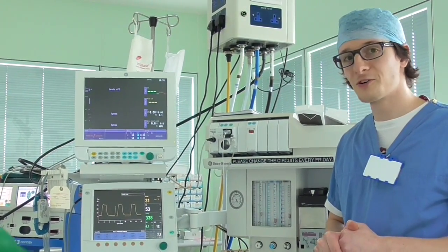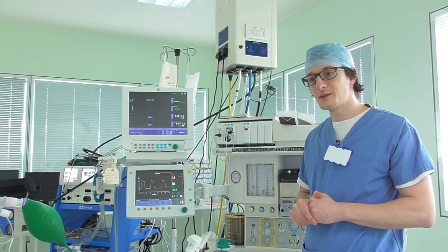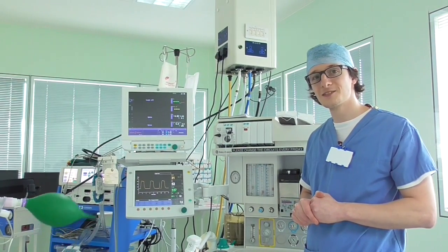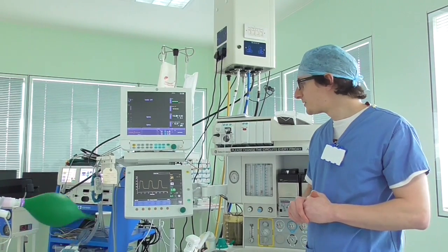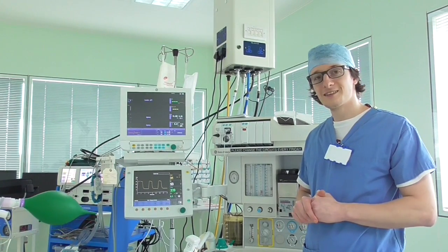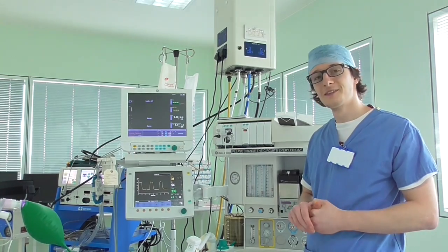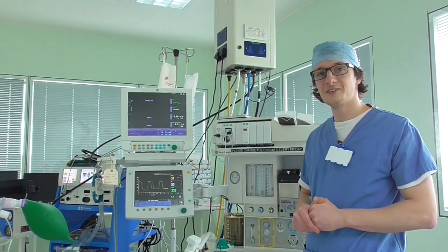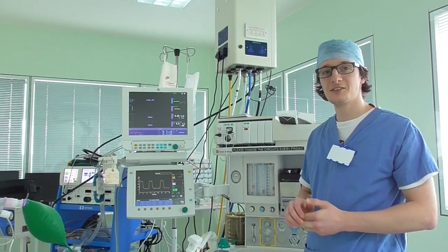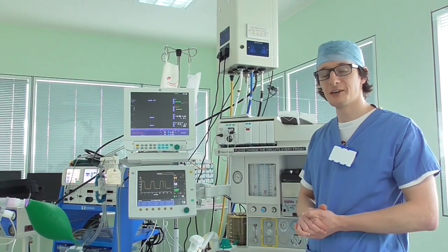So that's a brief tour of the anaesthetic machine. We have to know this machine back to front to pass our exams and to use it safely. It can be a bit of a mystery at first — it takes a short while to get used to — but now I use it every day and it's very familiar. Thank you for listening; I hope you've enjoyed the video.